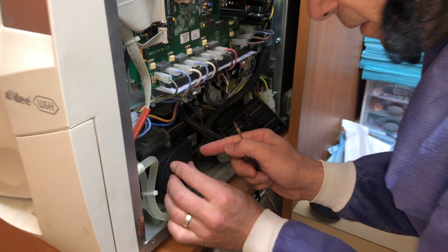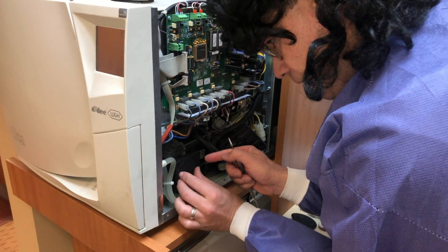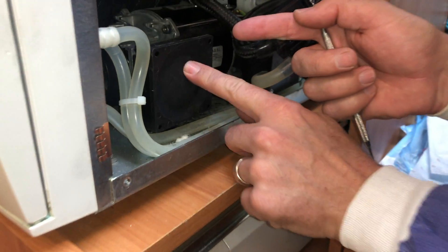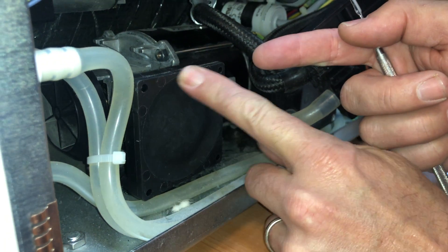This went a lot better than when I did it the first time on the other side. And then you've got to make sure that the margins are nice — they're all about margins. So that shouldn't be a problem. Now all the margins are good in there.